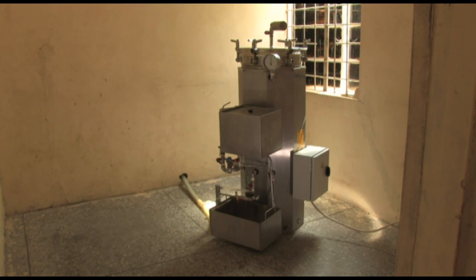As with any piece of equipment, it's important that those people using a vertical autoclave understand how to get the best out of it and how to carry out simple day-to-day maintenance.